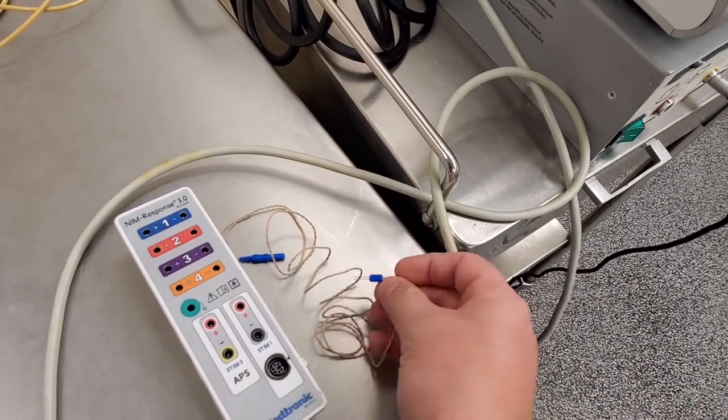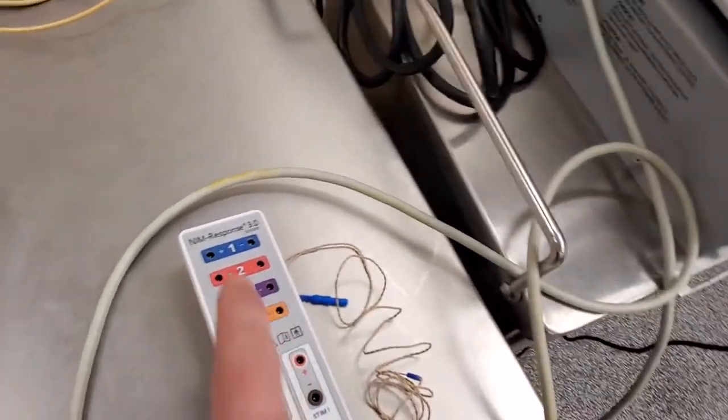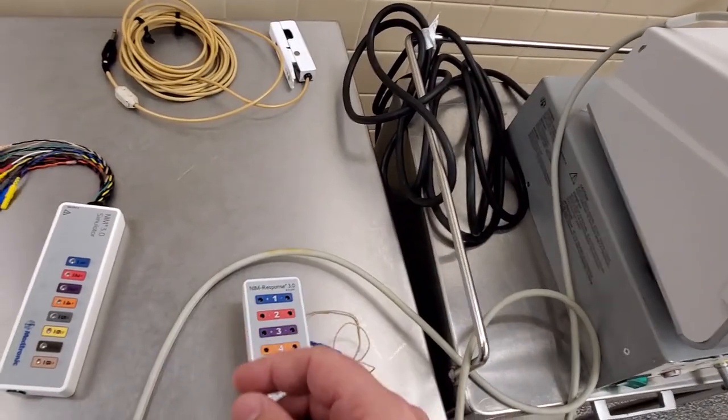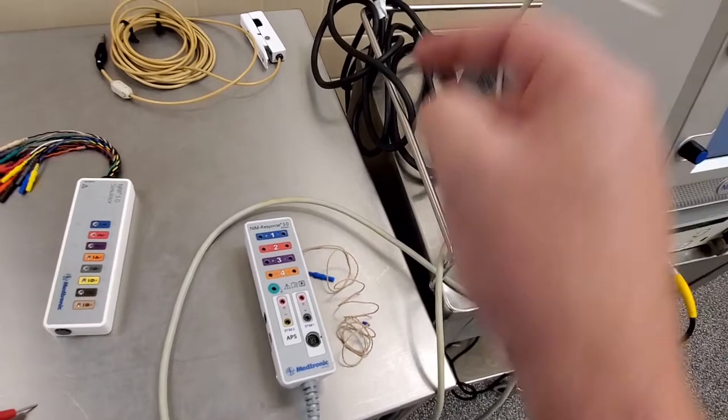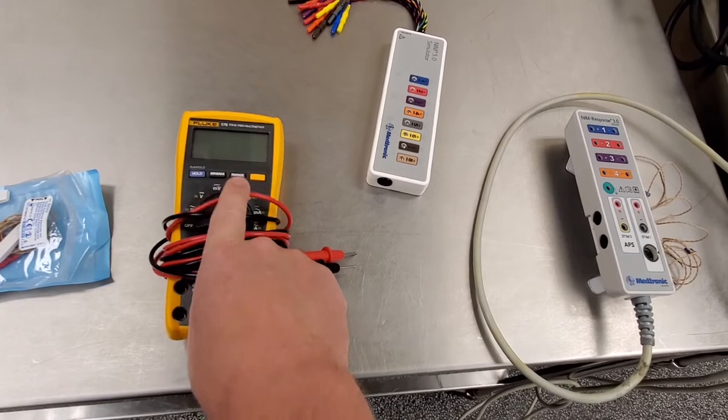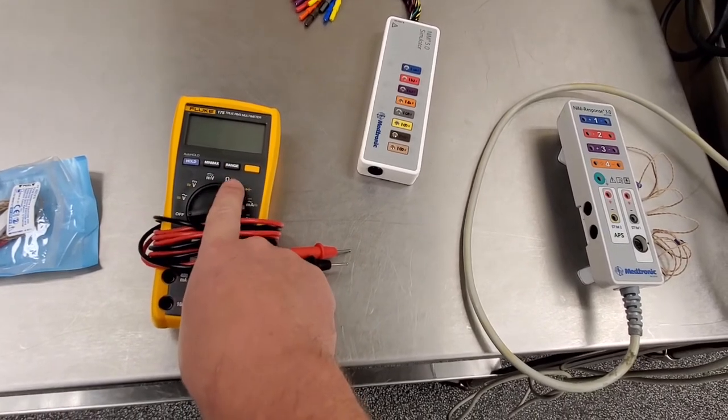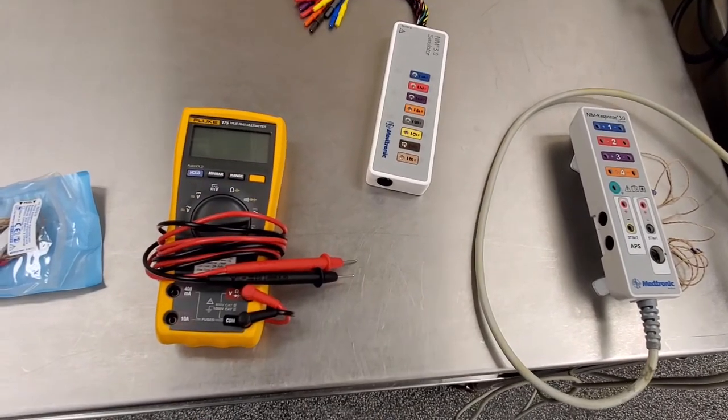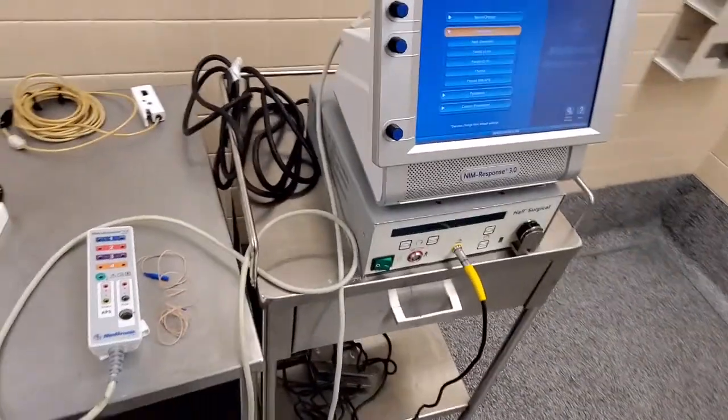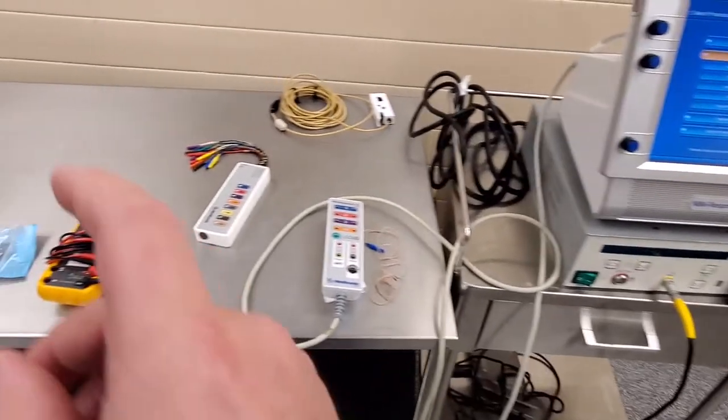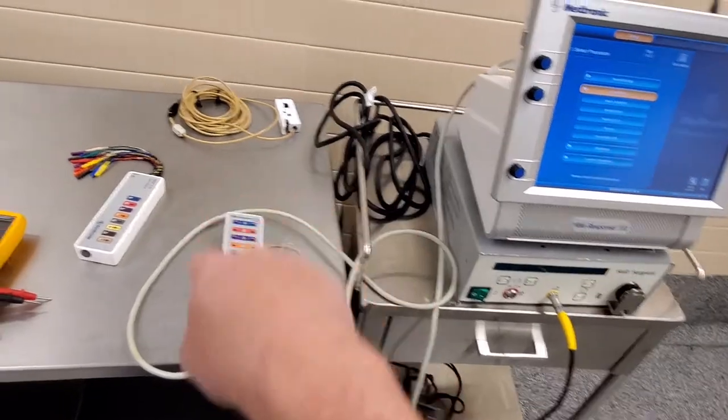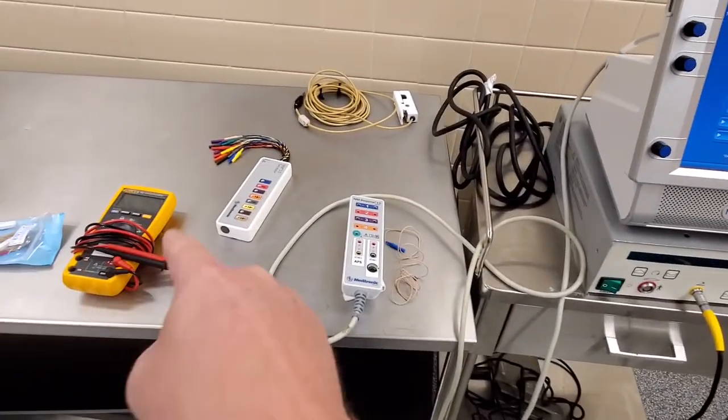These go into the patient's skin at known nerve locations, and what it does is it transmits an electrical signal through the body where it's detected at another part of the body, very similar to continuity checks. You see, nerves transmit electricity via high frequency pulses, and this guy sends out a high frequency pulse to find out where the nerve is going, exactly like a continuity check.